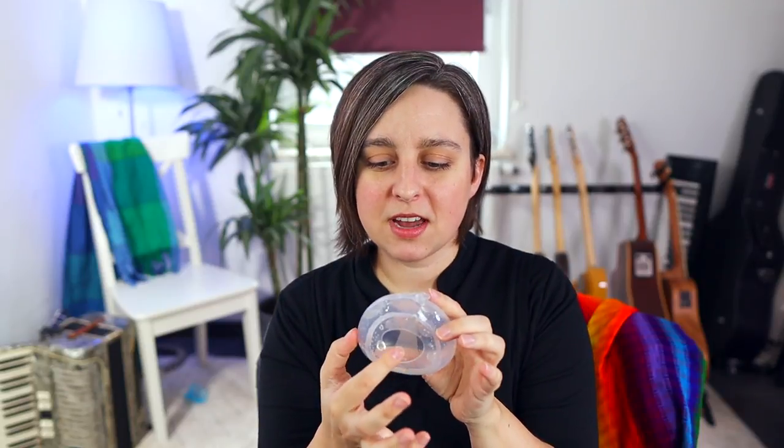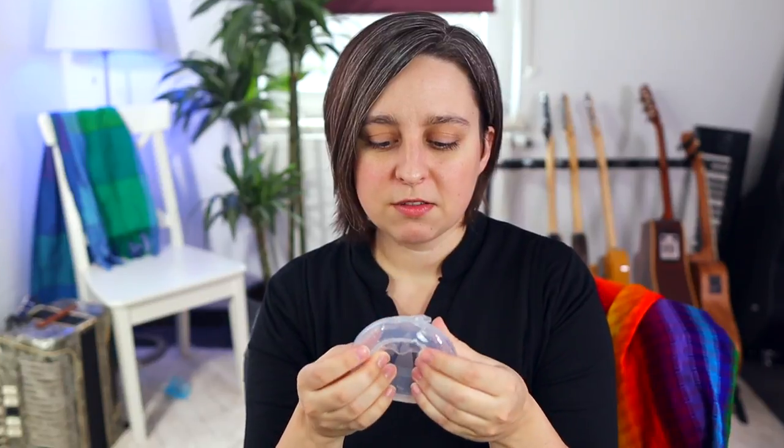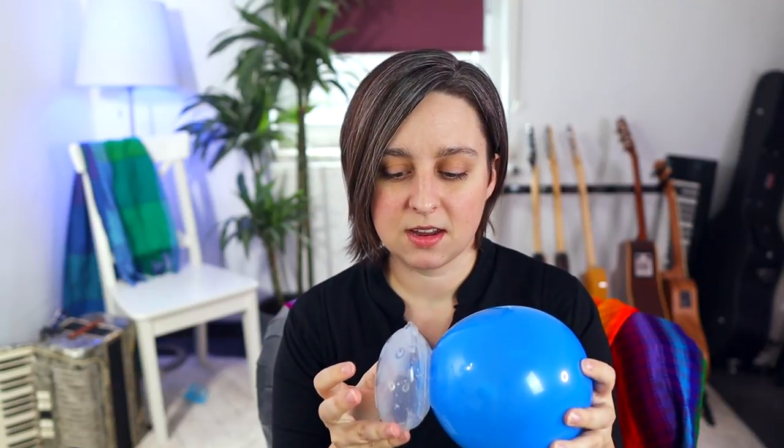You could actually put that in your bra, though it's not the best shape. I'm actually going to be doing a review on Instagram on a product I like better for in-the-bra milk catching that even has some suction — a little product from LV, it's awesome. This one is also kind of an awkward feel. It's really flimsy, which is nice, but the hole is very big. It does have very light suction, so if you're looking for something not as strong as the Haakaa but just a little bit of something, it works well.